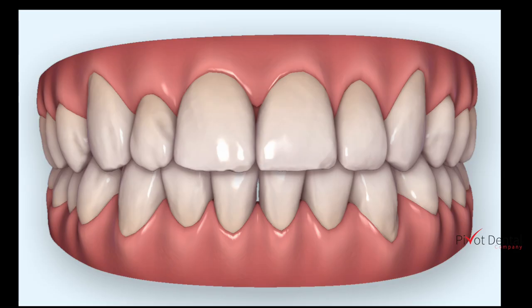And if you can see, when we get to the end — if I were to draw a horizontal line across the gingival part of that setup — you can definitely see now the difference or the discrepancy of the gingival height of number 7 versus number 10.